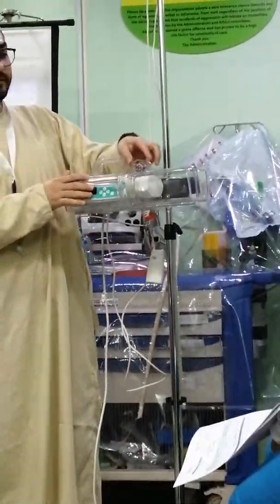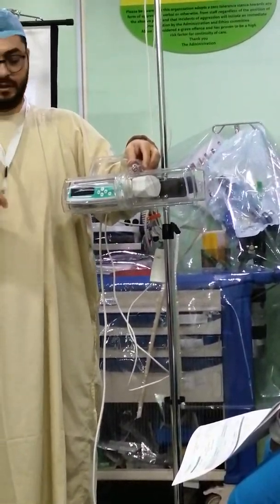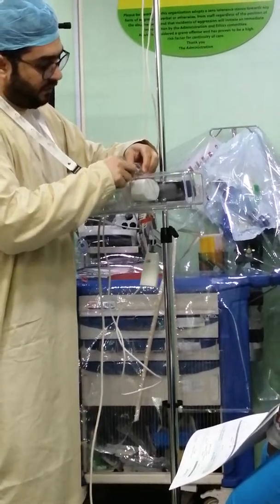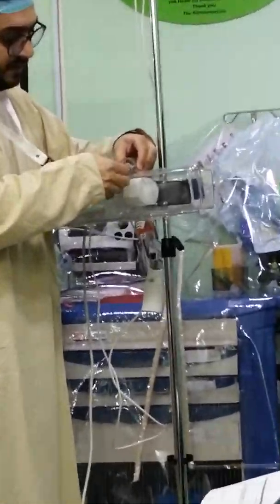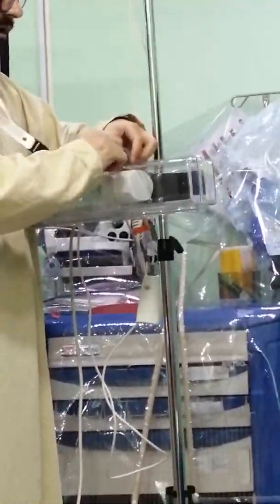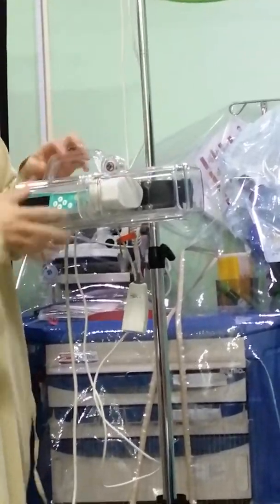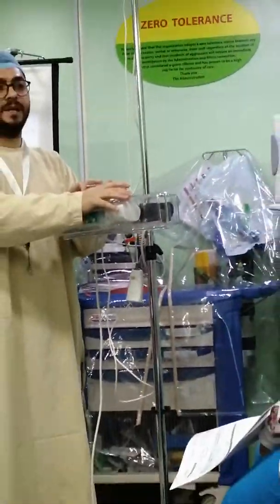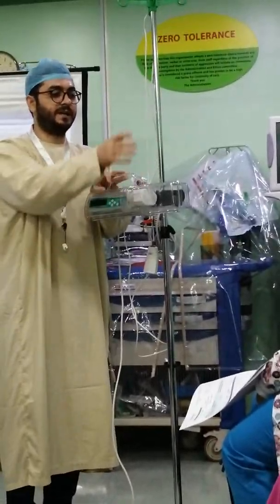The other option is to lock the pump itself — to lock the whole device — so nobody can reach the medication inside, unless the box is broken.